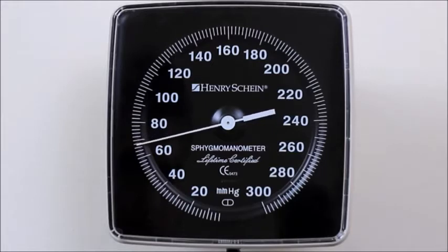Phase V sound is not a sound, but rather is the level at which sounds disappear. The diastolic blood pressure is measured at the start of Phase V.